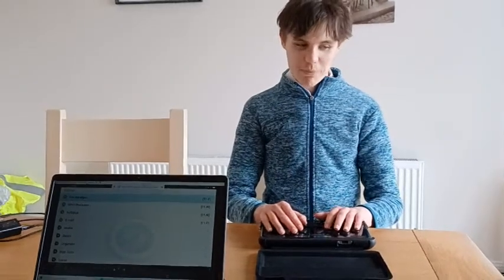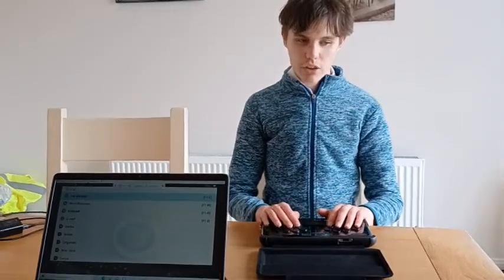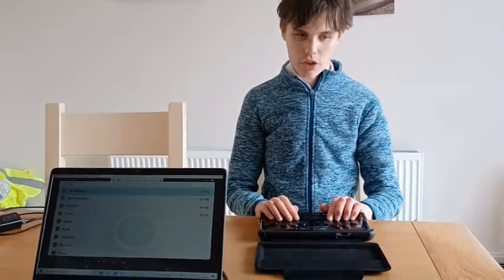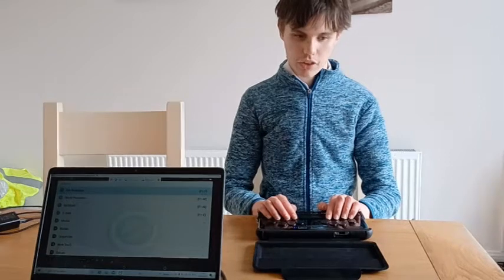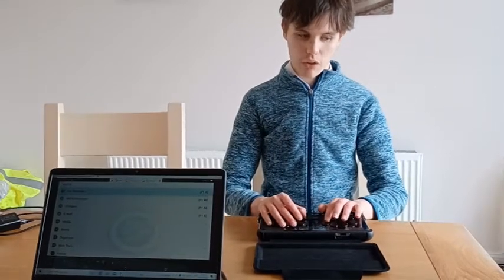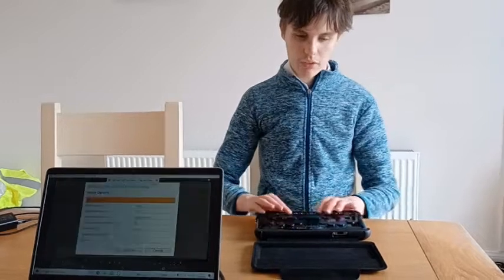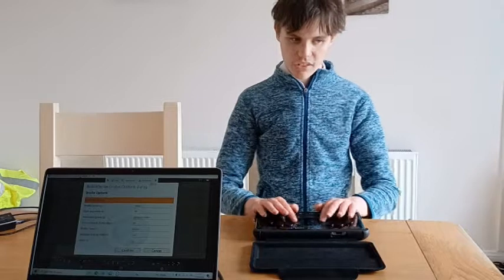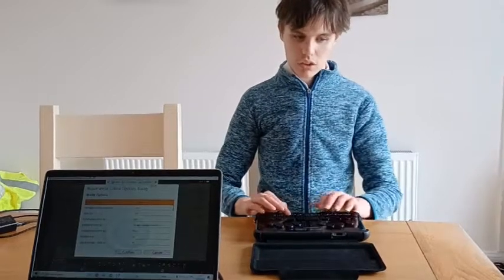Alright, so I've shown you how to change the Braille code. I put it into German, and now I will change it back to English. So again, space and dots 1, 3, and 5 for options. Braille display B on list item. And then I'll press C twice. Braille code C, German list item.